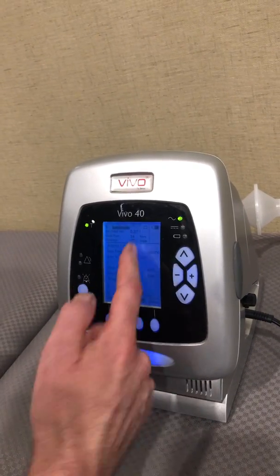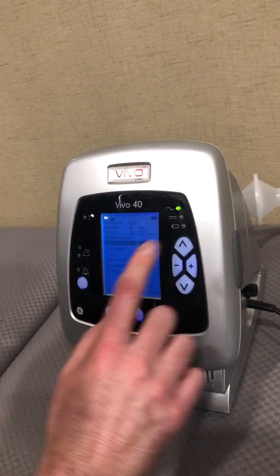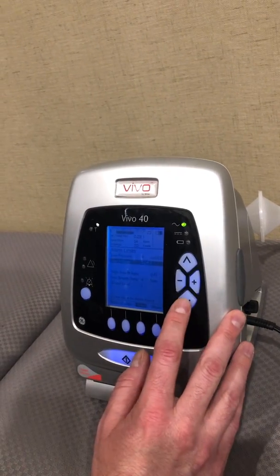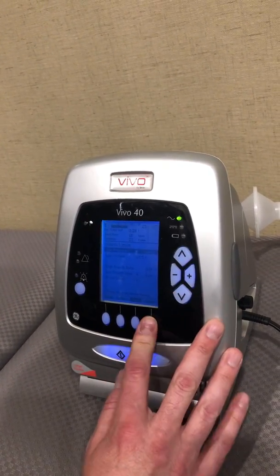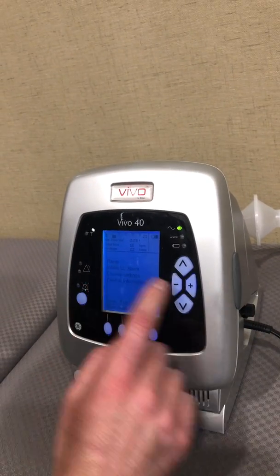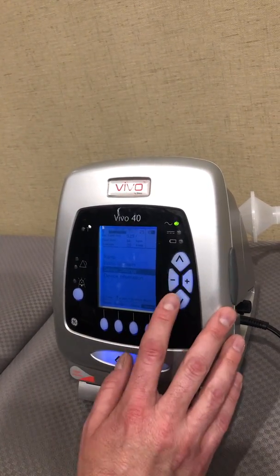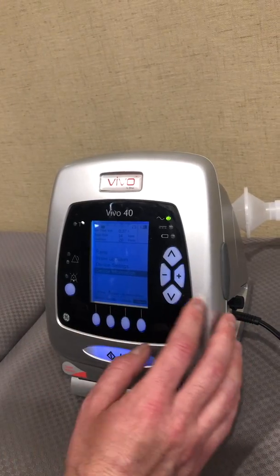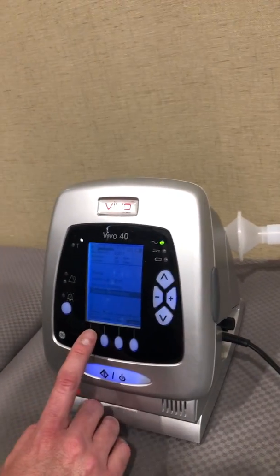For alarms, you can go through and set those as well — I'm going to leave the defaults as they are. You can also set other things like your ramp, device settings, and device information, but I'm going to leave everything as it is for the moment.